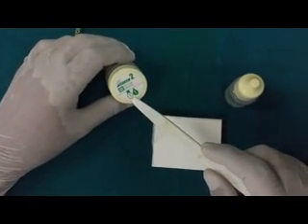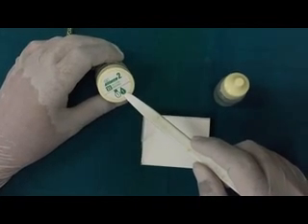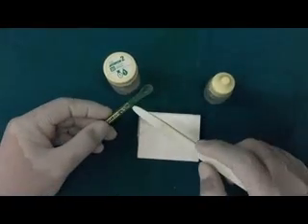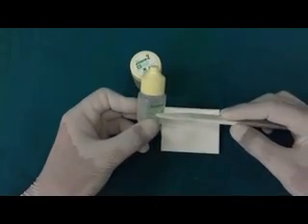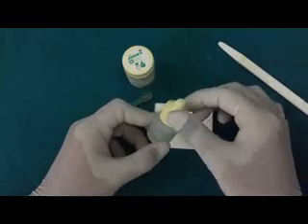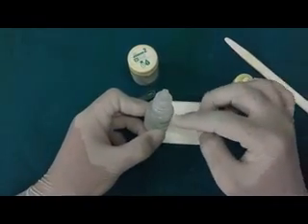Here the manufacturer has mentioned one scoop of the powder goes with one drop of the liquid. The scoop has to be the one provided by the company and not any other scoop. Also the liquid provided by the company in the bottle should be used so that the amount of liquid dispensed in one drop is always the same.